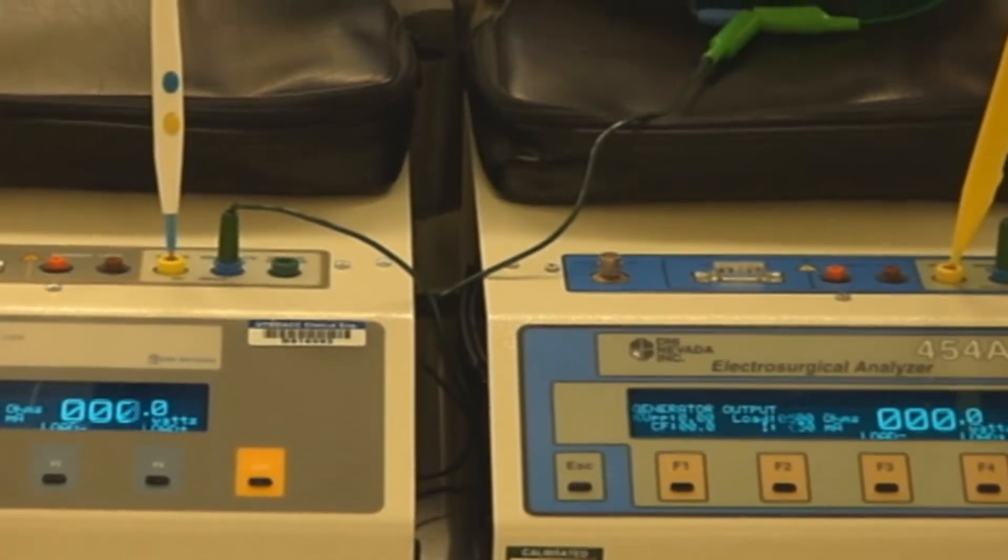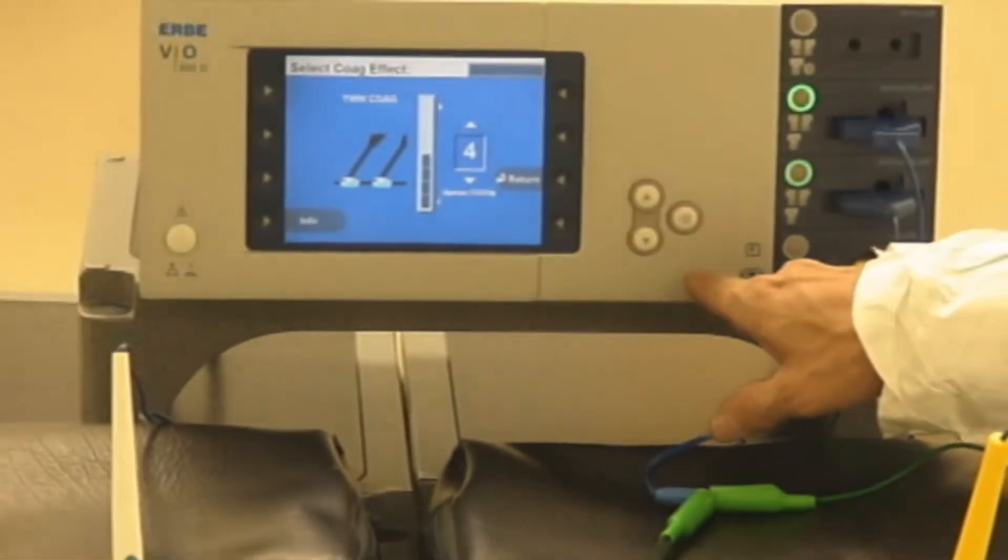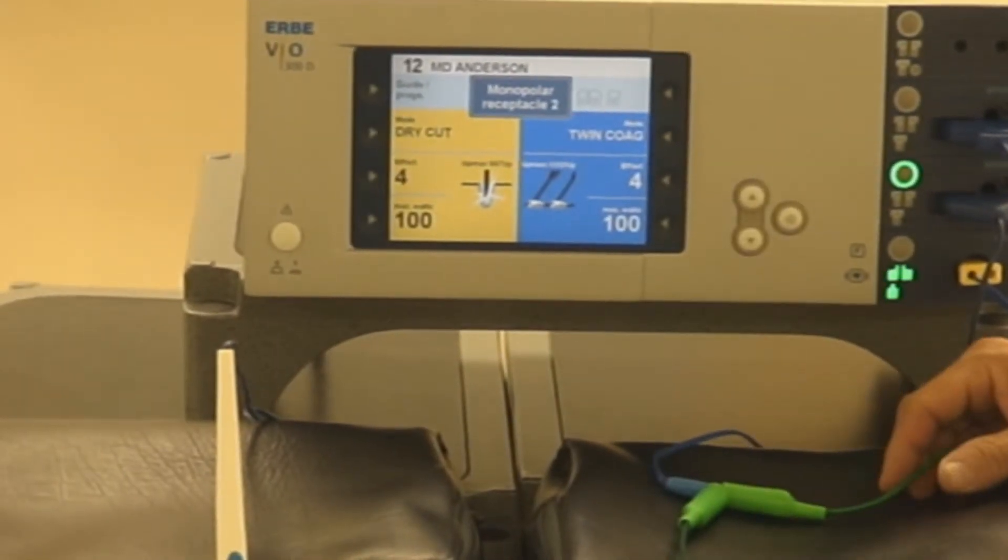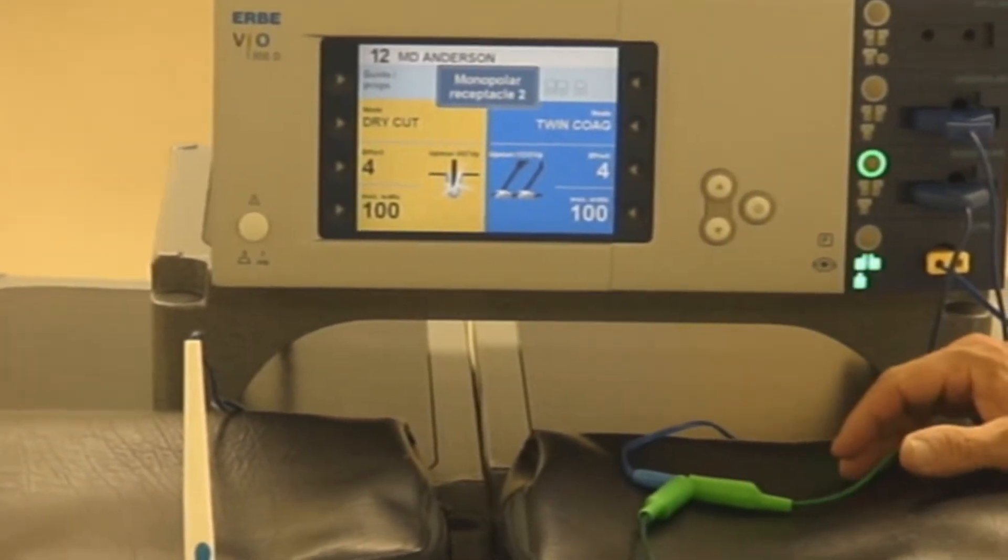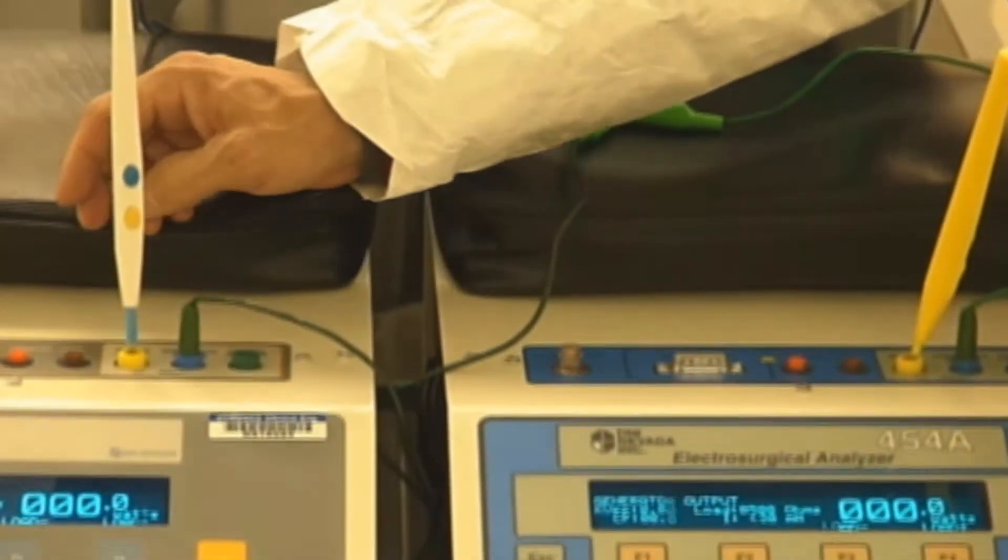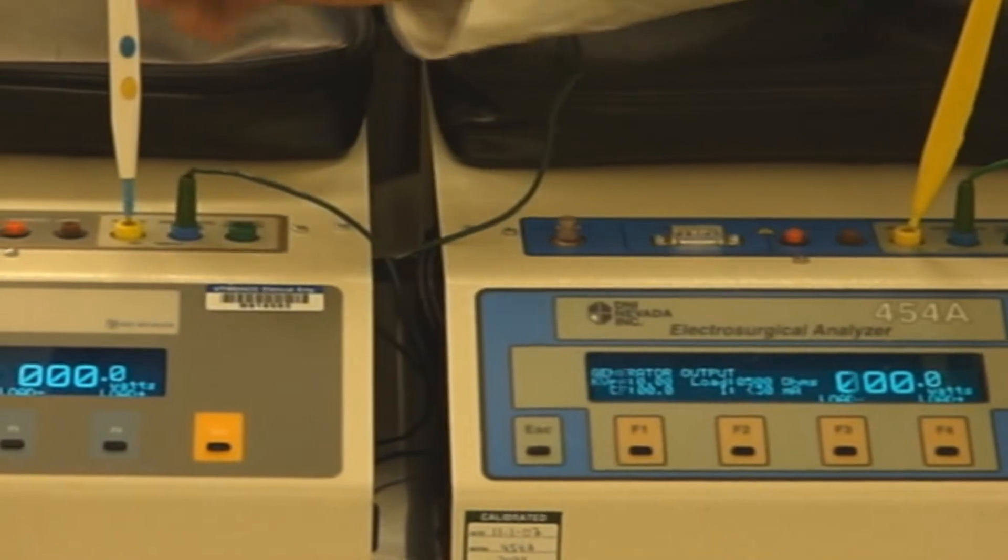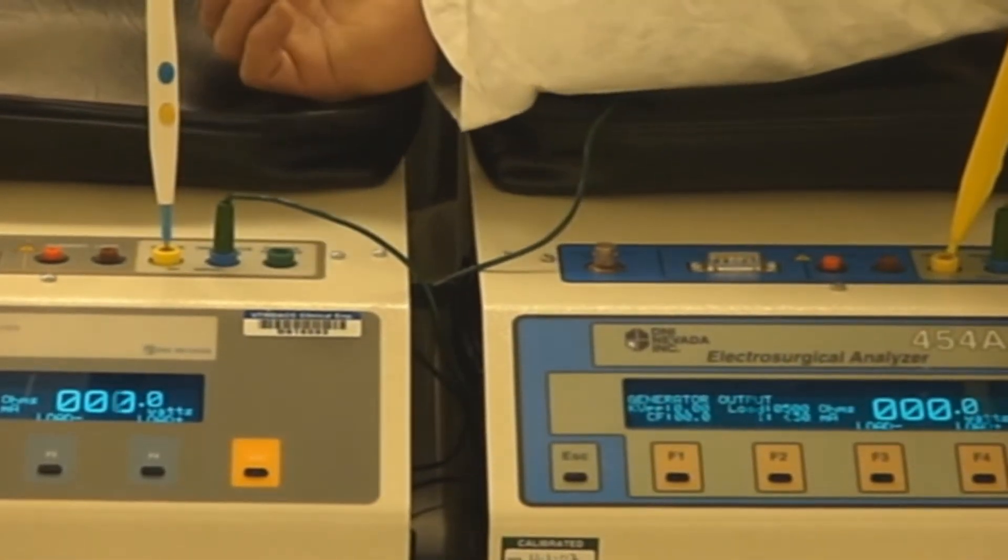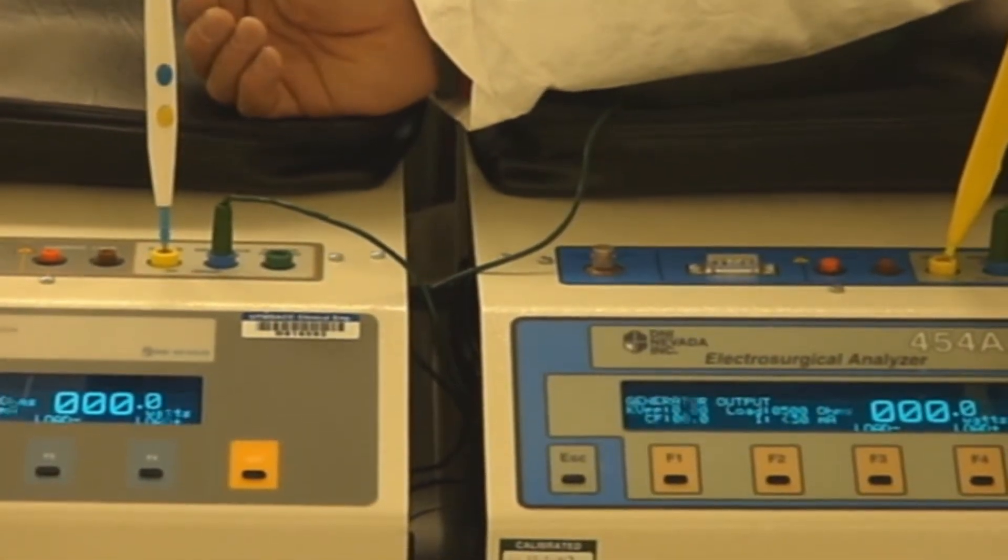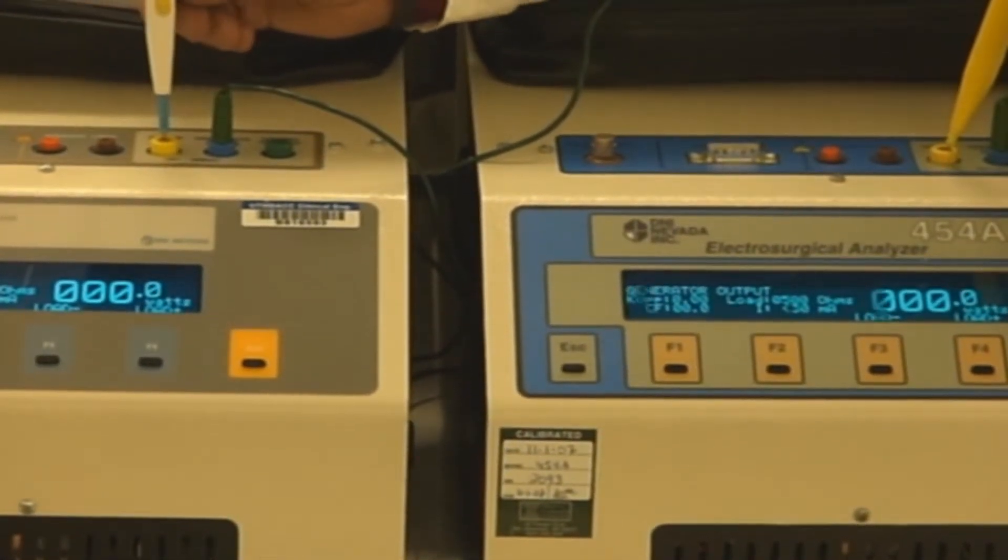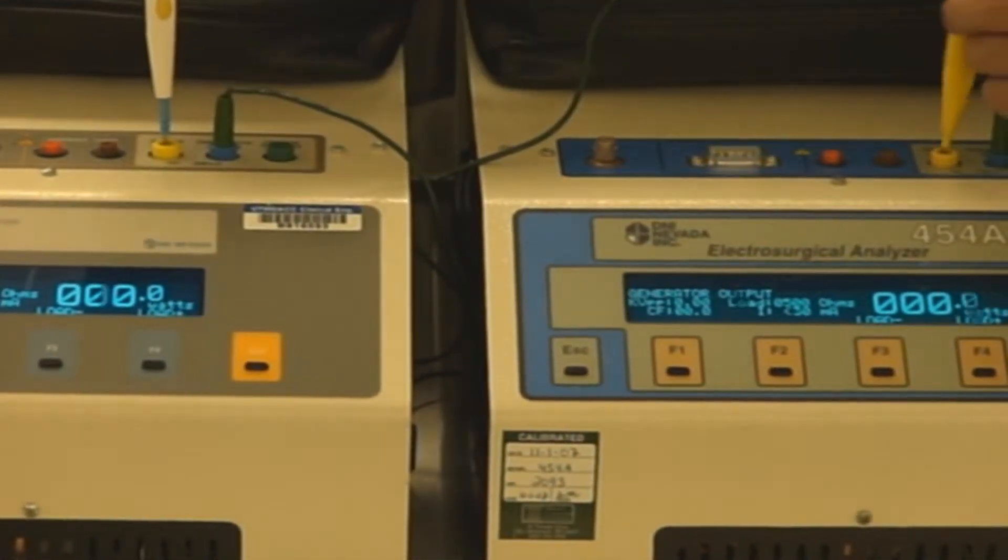For test purposes, we're not logging the exact wattage that is delivered on each of these different scenarios because it's all plus or minus 10 to 15 percent of the split itself. And obviously it's in compliance of 15 percent for overall delivered power, which is actually tighter than the AAMI standard of 20 percent.